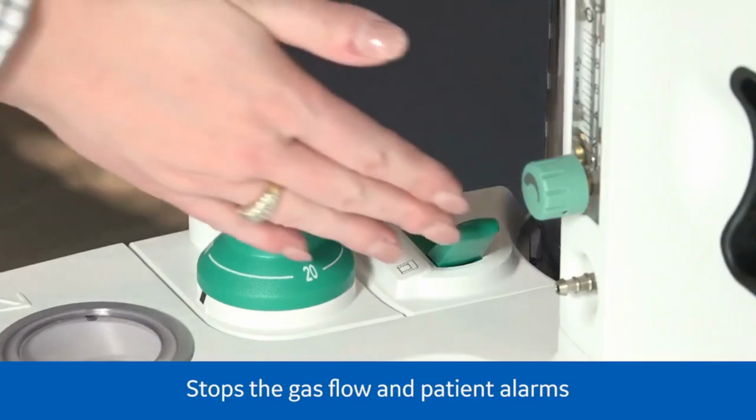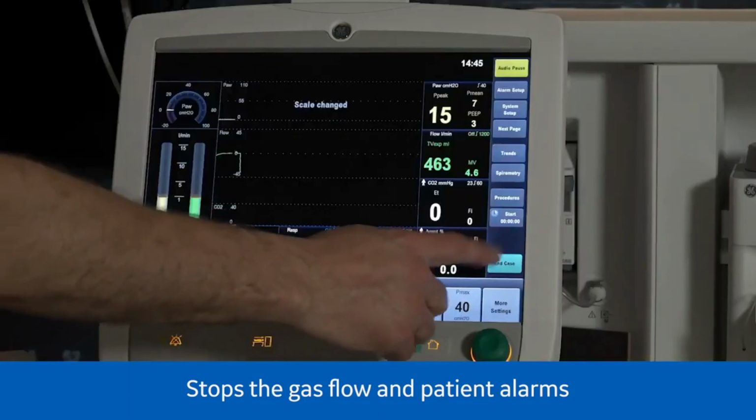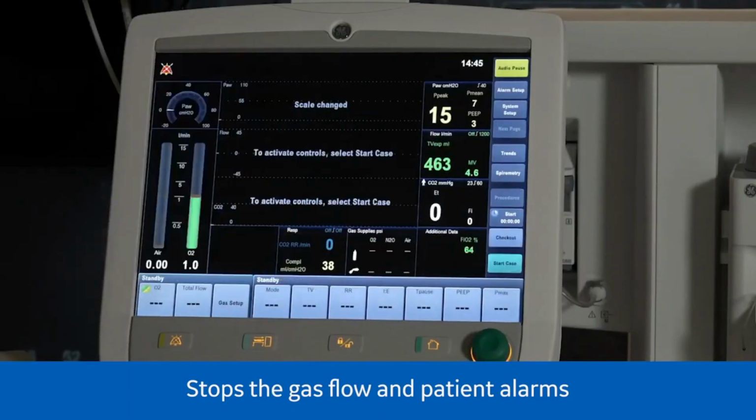To end the case, set the bag to vent switch to bag and select End Case. Select End Case now on the menu to put the system in standby.